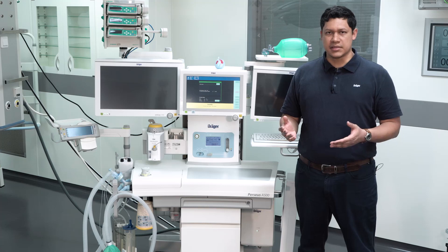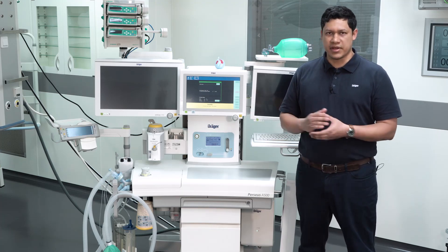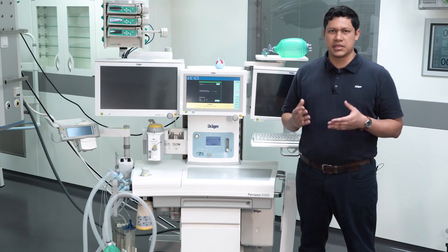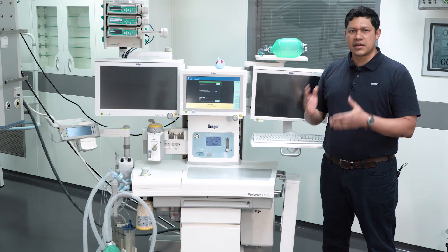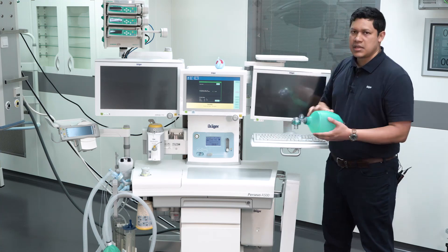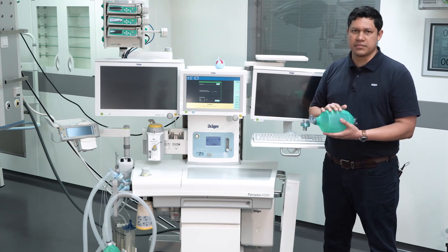Before starting the case and connecting the patient to the system, verify the readiness of the device and the accessories. We will cover further details in following videos. An external resuscitator must always be available at the workplace. This is to secure ventilation of the patient in case of failure of the system.